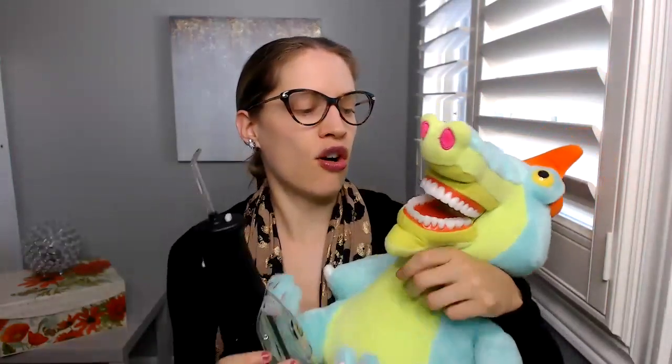So I'm going to use this little guy here because he has teeth and he has a mouth, which is important to kind of show you guys how to use it. If I try to show you on myself, it might be kind of hard. So the first thing to do is obviously fill up the water. Don't turn it on until you have it inside the mouth and close your lips around it. He doesn't have lips, but close your lips around it — I'll actually show you with mine.